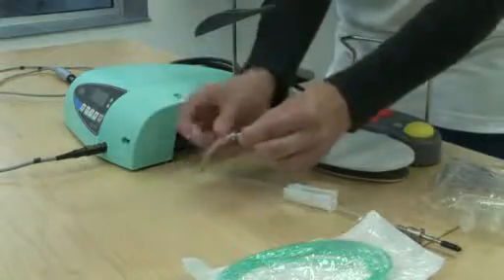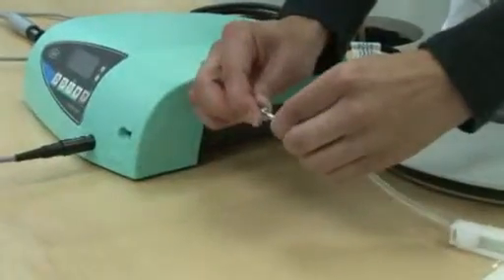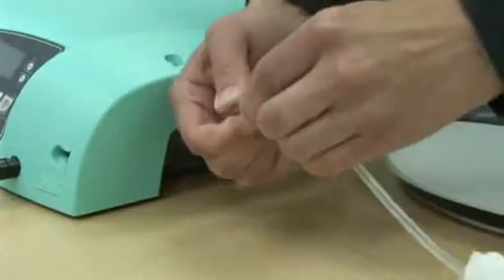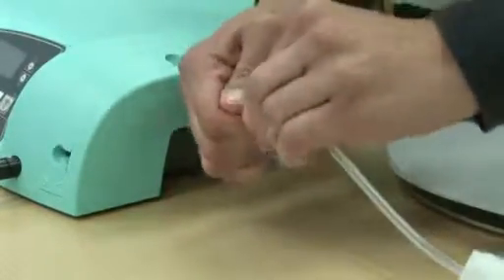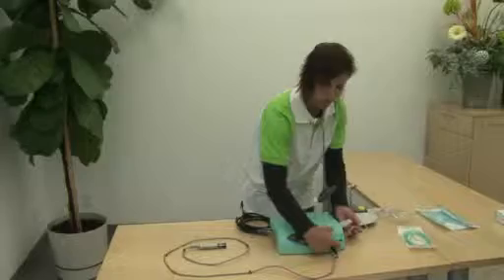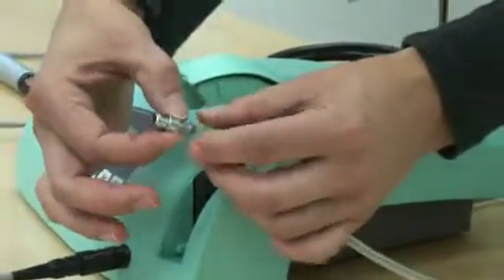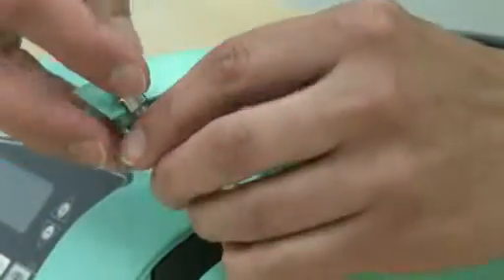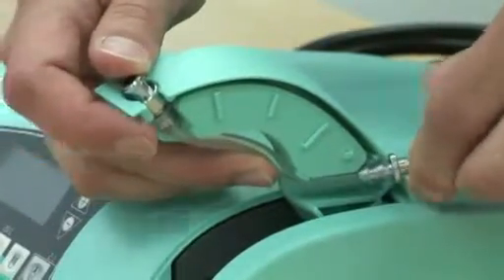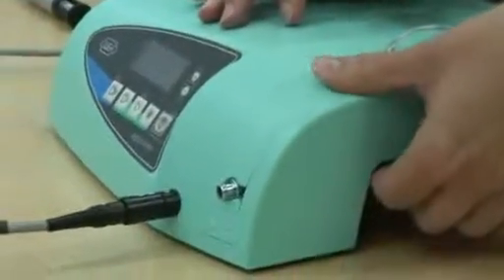We want to connect the cone metal end to the bottom section of the silicone tubing. You want to make sure that you push this tubing all the way to the flat metal section of the cone. Next we will open the pump wheel compartment. On the lower lock end you will find two flat sides — just insert like so and snap that in. Then come around and insert the bottom section and snap down until it clips.